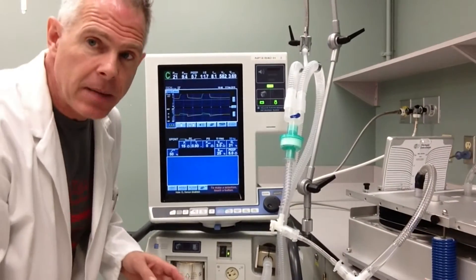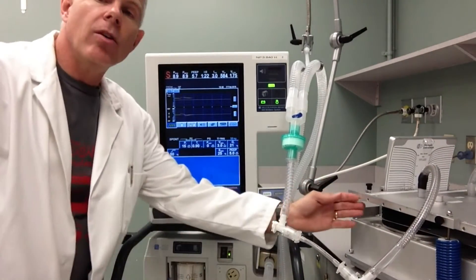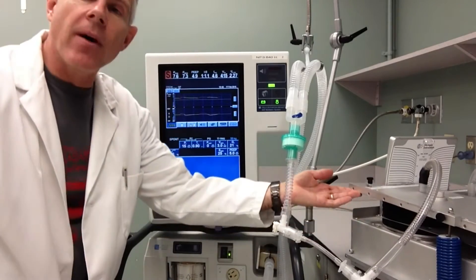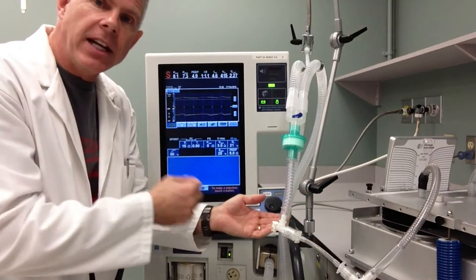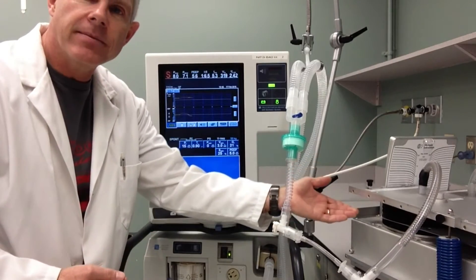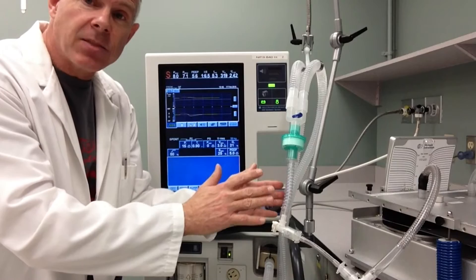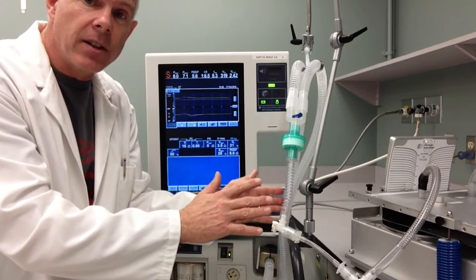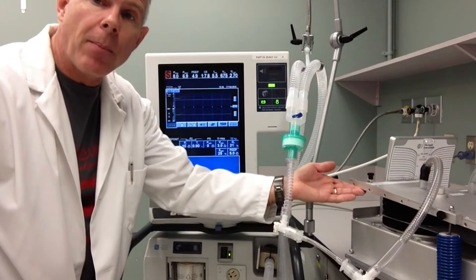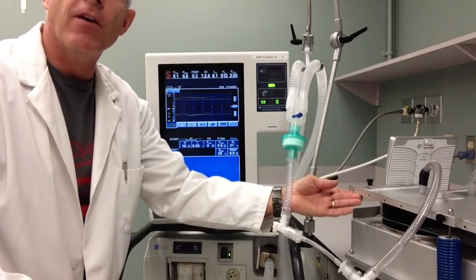A couple of things to keep in mind: as I move the test lung here — as I lift up on this — I'm actually pretending to be the patient. This is inspiratory effort. The patient is not making any spontaneous inspiratory efforts at this time, and when I pull up like this, it mimics the work of breathing of the patient.